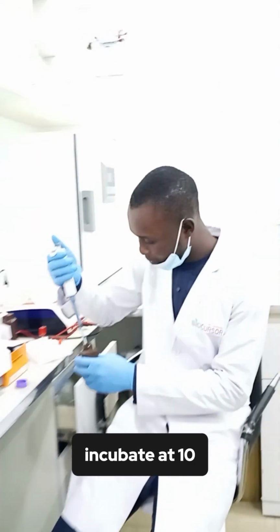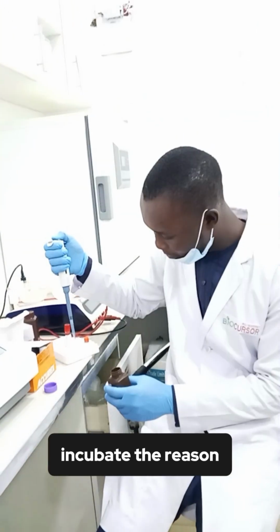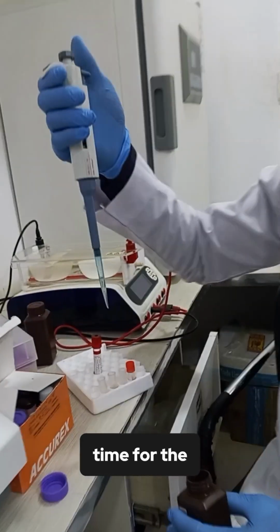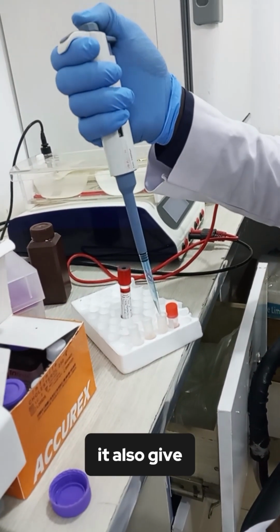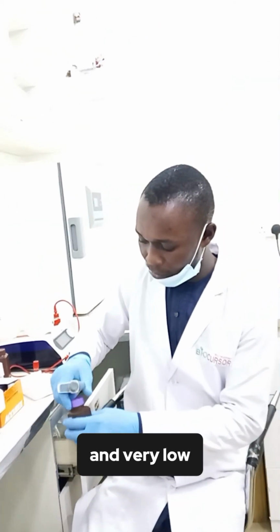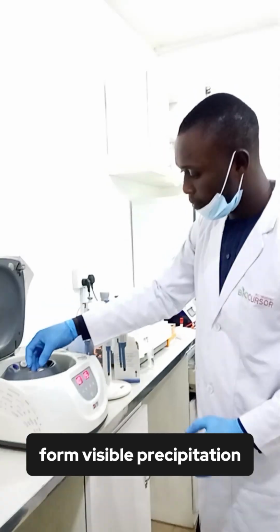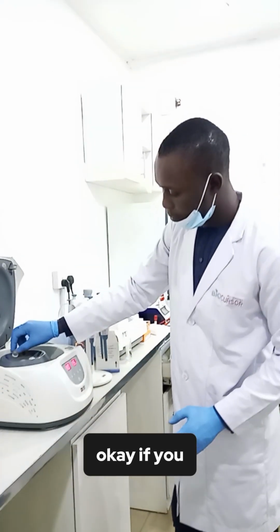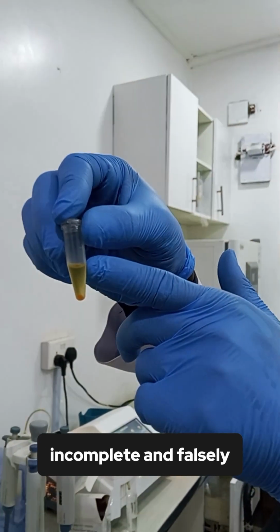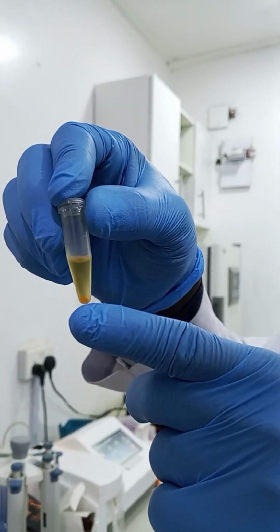Why do we incubate for 10 minutes? The reason why we incubate is that it gives enough time for the reagent to fully react. It also gives enough time for low density lipoprotein cholesterol and very low density lipoprotein cholesterol and chylomicron to form visible precipitation. If you centrifuge too early, precipitation may become incomplete and give falsely high HDL results.